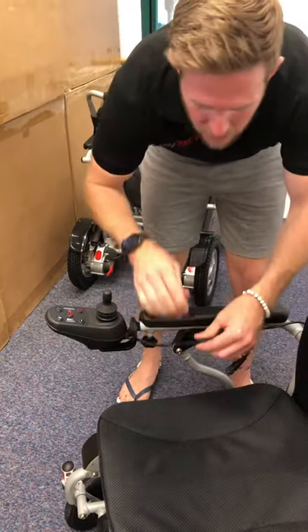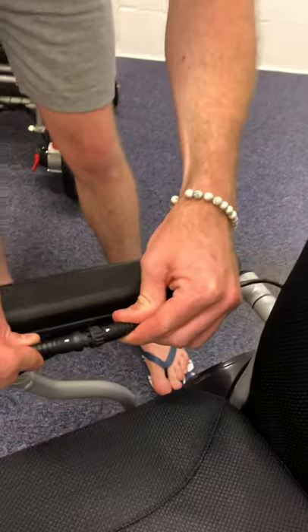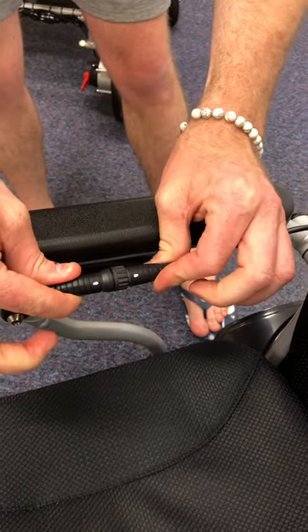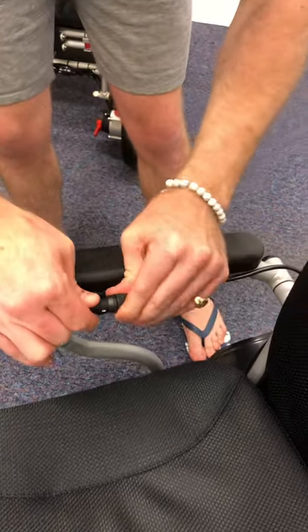We just tighten the little bolt underneath. On this lead you've got a white arrow, and on the connecting lead there's also a white arrow — simply line the white arrows up and twist the middle for a secure connection. Reverse is twist and pull. It couldn't be more straightforward.